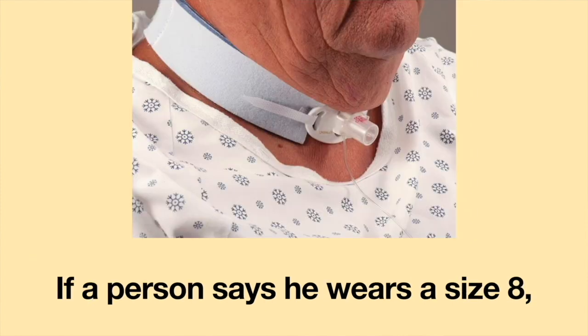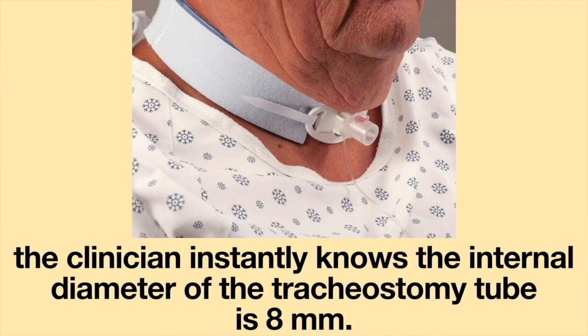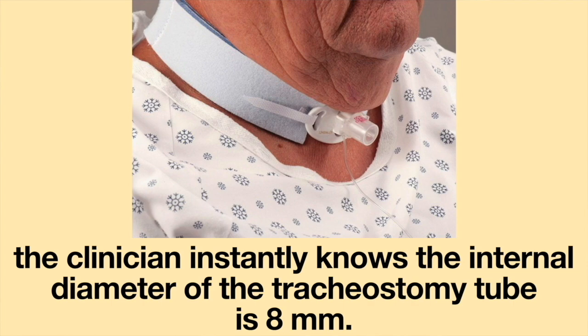If a person says he wears a size 8, the clinician instantly knows the internal diameter of the tracheostomy tube is 8 mm.